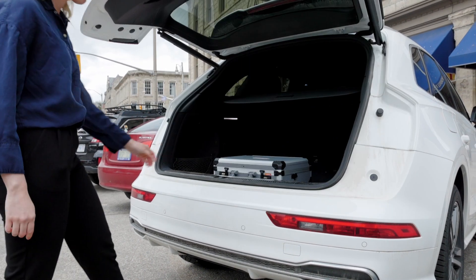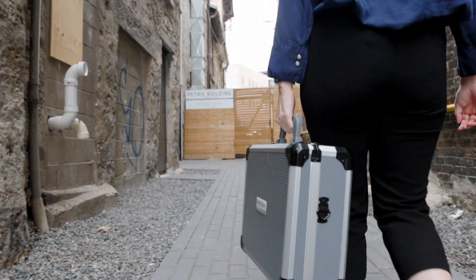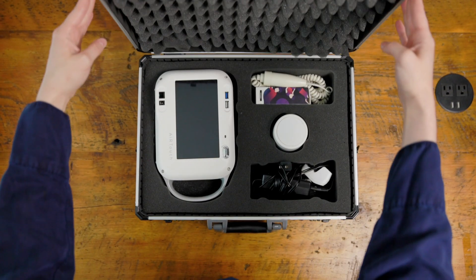The device is ultra lightweight, weighing only five and a half pounds for ultimate portability and convenience. It comes in a hard shell travel case holding the Europa and all of its accessories. Remove traditional barriers to having x-ray at your facility — there is no construction or installation required, no need for additional electricity that a traditional x-ray room needs, and it does not require a dedicated physical space like a conventional radiographic system.